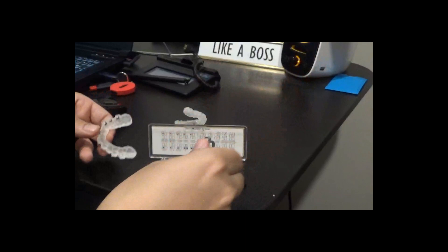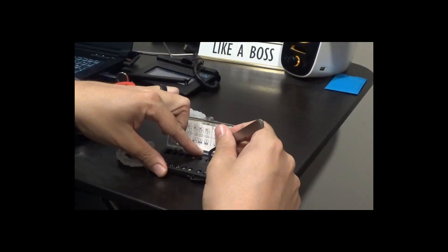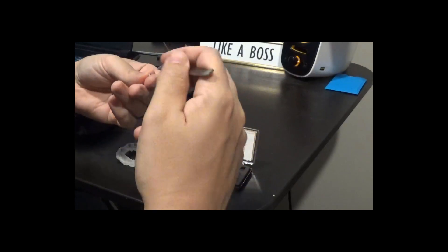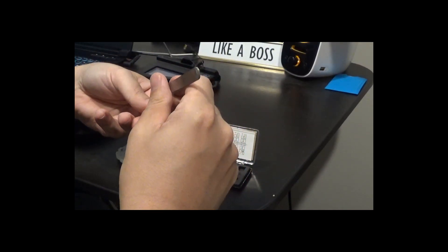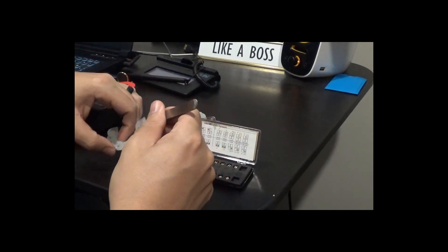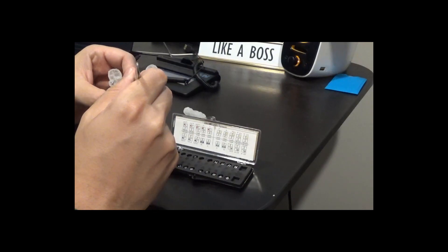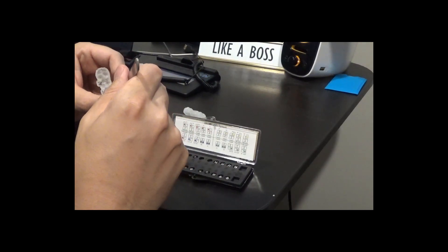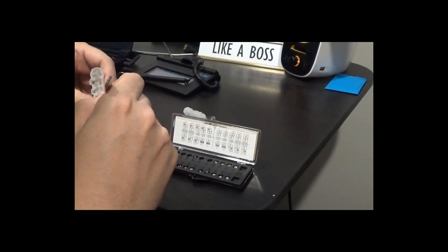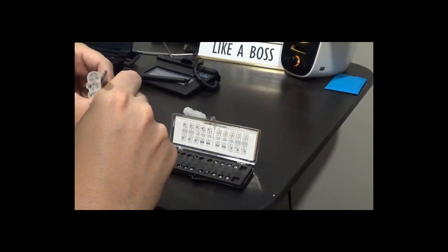Loading them up is pretty easy. Once you get efficient with all of this, this is a great thing to train your team to do. Ideally, eventually, once your team gets used to how to do things, you're not the one doing this — you want your team to be the one doing this. That is what makes this the most profitable and the most efficient.